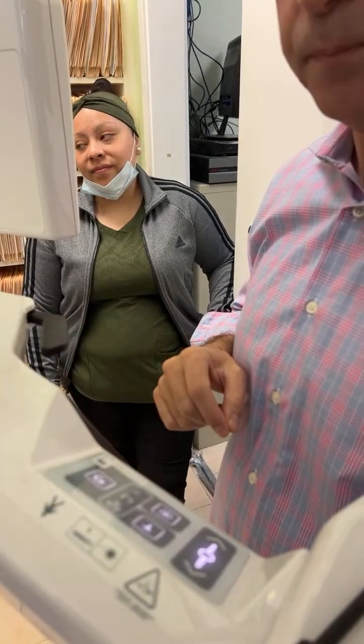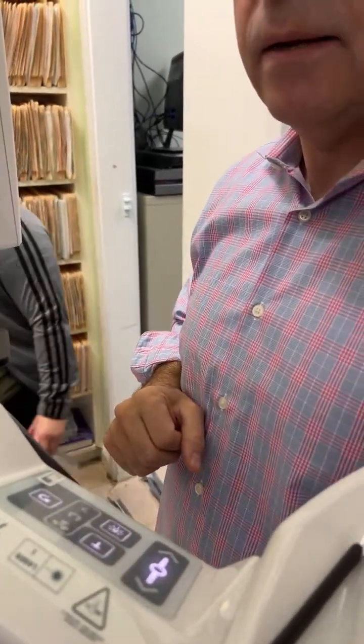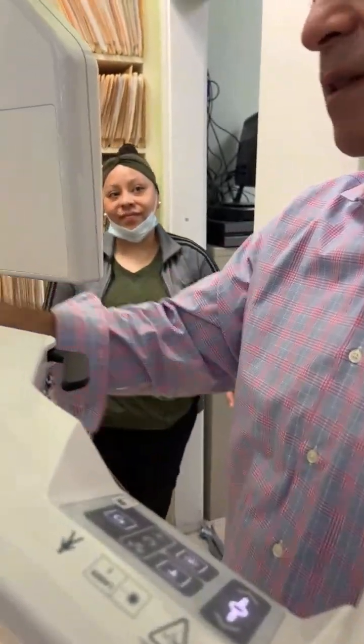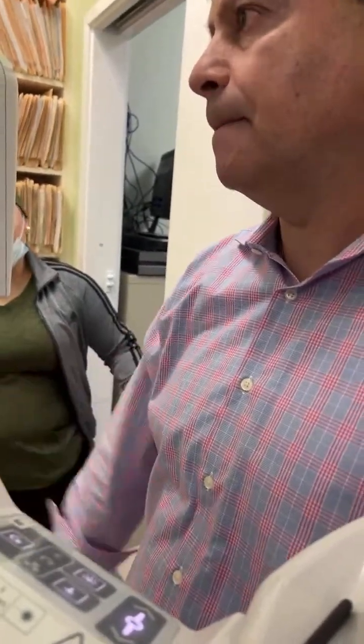Are we able to move the light down? You see this one is the best. And you'll see the opposite is true when you're working in, let's say, the mandible. You'll see the lights are more under the chin and focusing on the mandible.